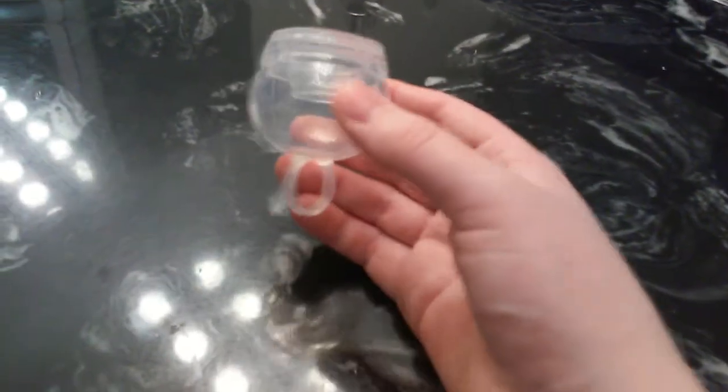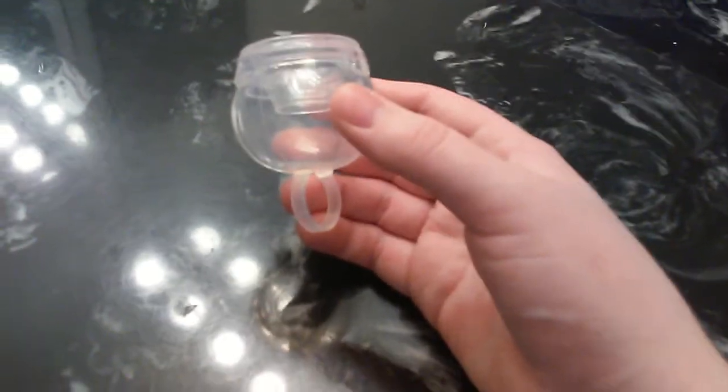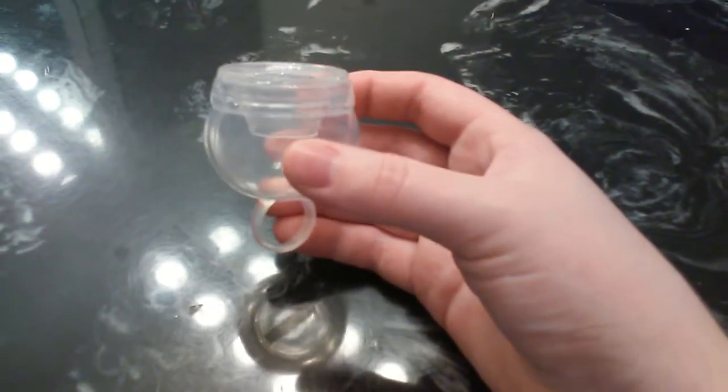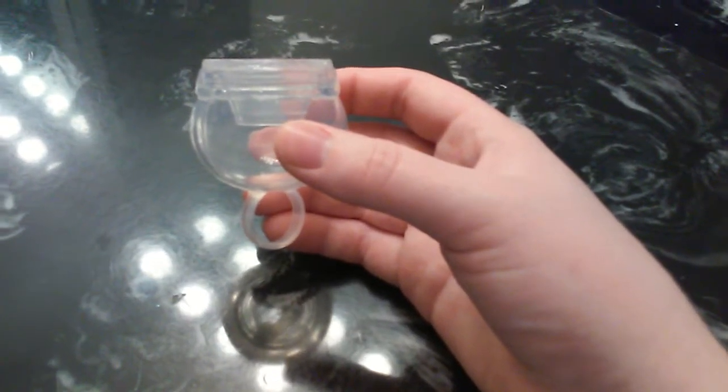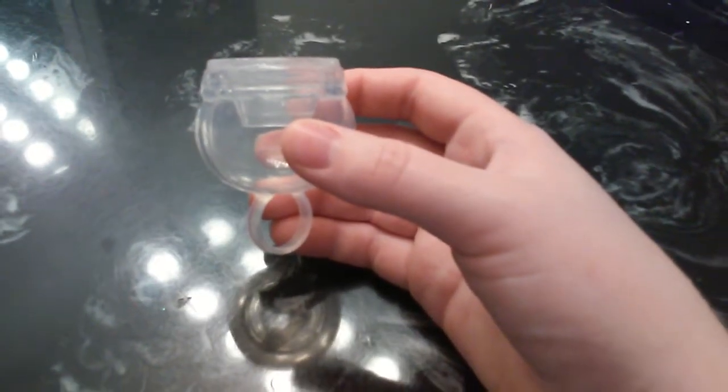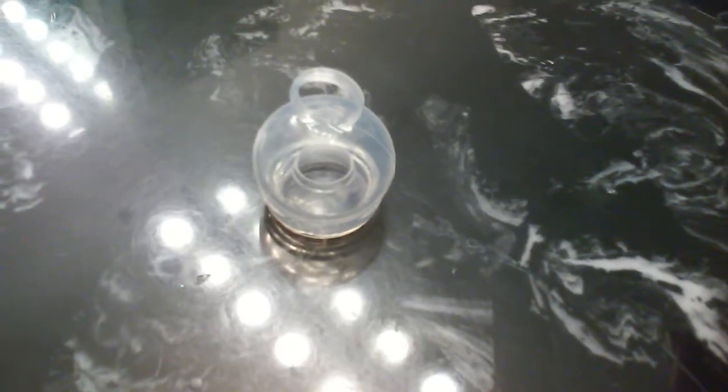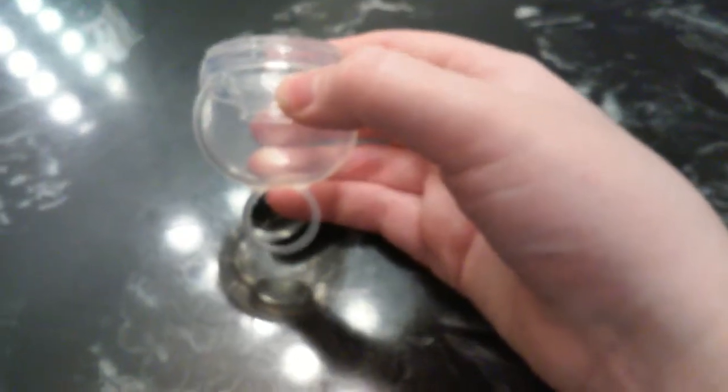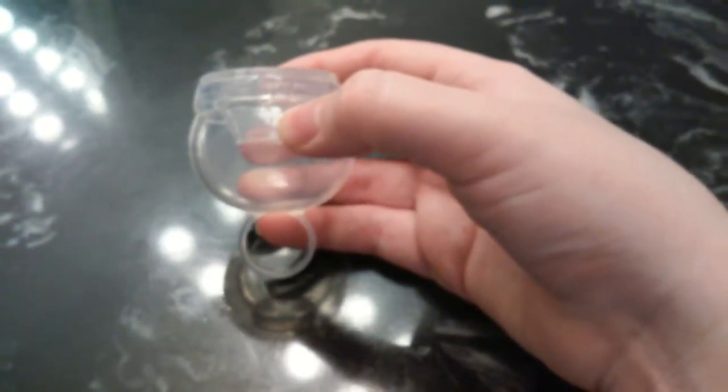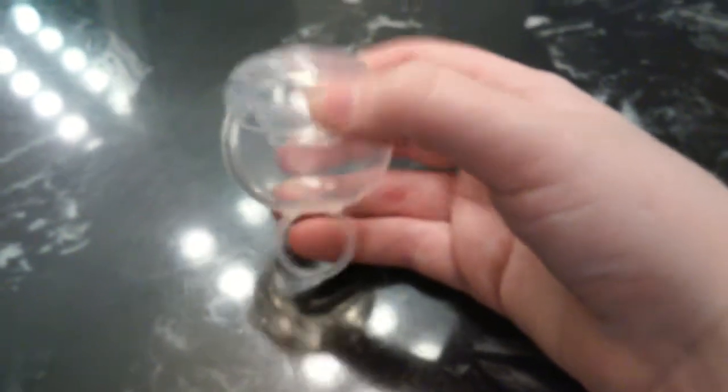Would I recommend this cup? Well, it depends what kind of experience you have with menstrual cups. If you're very experienced with menstrual cups and you just want to try it, I'd say go ahead and purchase it. But if you're a new user or you're just looking for one menstrual cup, this probably isn't the best fit for you. I would recommend something like the Lily Cup or the Scoon Cup to be a first cup, or even if you just want to just purchase one cup. This one, some people really like it, but I found a lot of complaints that it's just not very comfortable, and that was what I found from my personal experience.